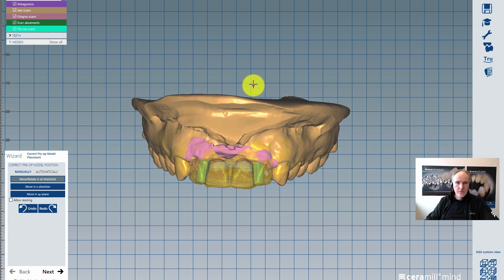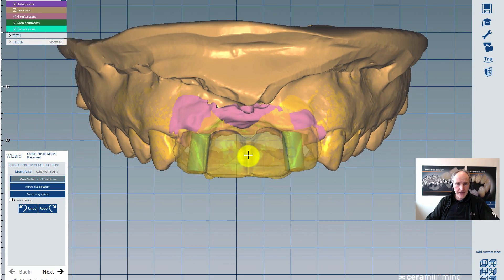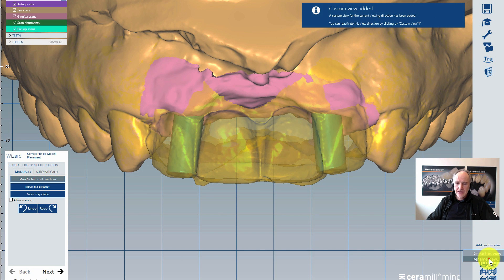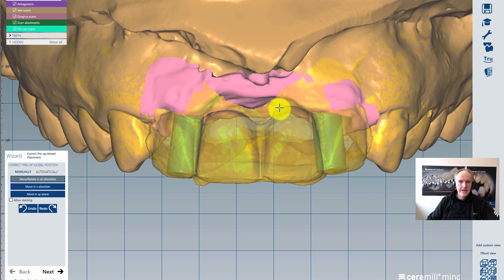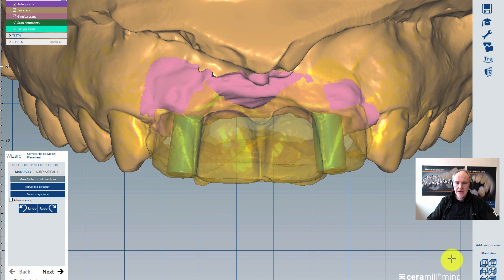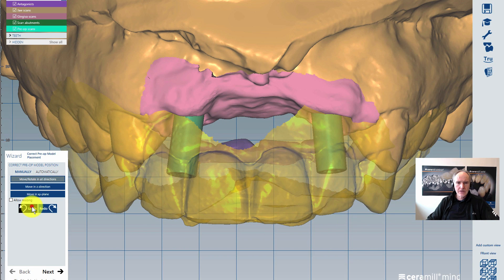For demonstrating some of the new features here, I go to a vestibular perspective. I click on 'Add a custom view' and rename that custom view to 'front view'. I click OK and now I can move the construction, and with a single click on my front view it is immediately in the same perspective. The first wizard picture shows the correction of the pre-op model — I don't want to do it, as this scan was already in the right position.